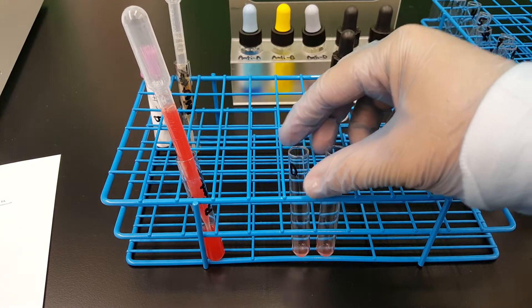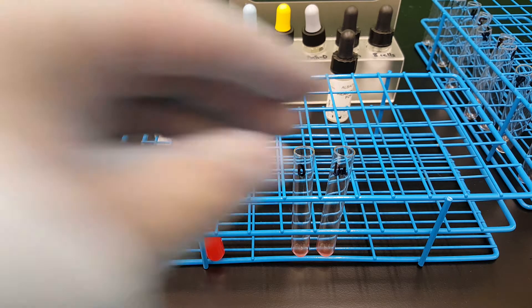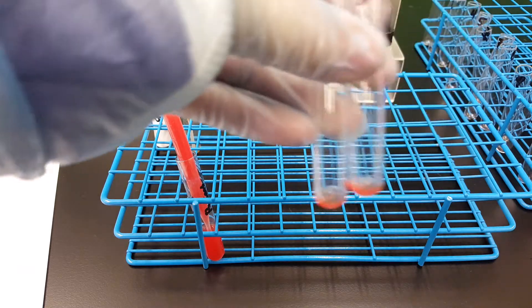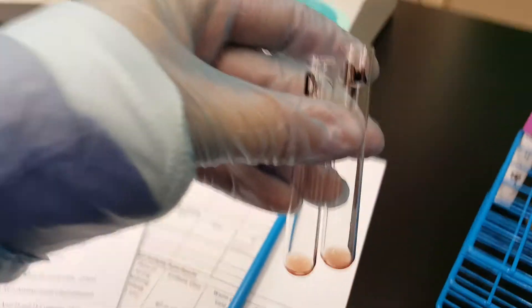So the next thing that I'm going to do is I'm going to incubate the two tubes at 37 degrees and we'll see what we find there.